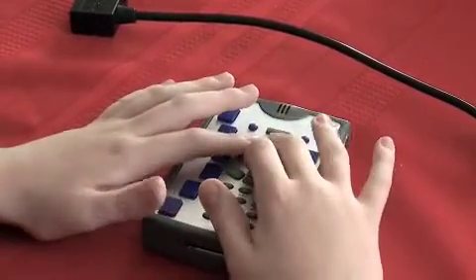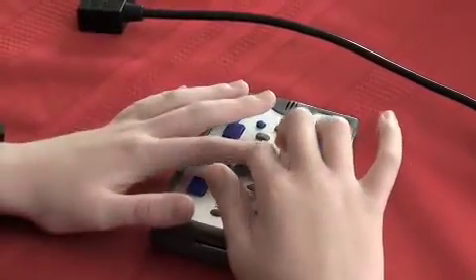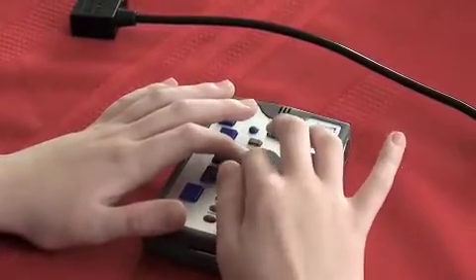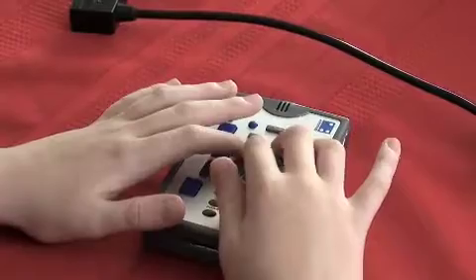The next button is the down arrow. It's below Select and if you push it, we're going down the menu.